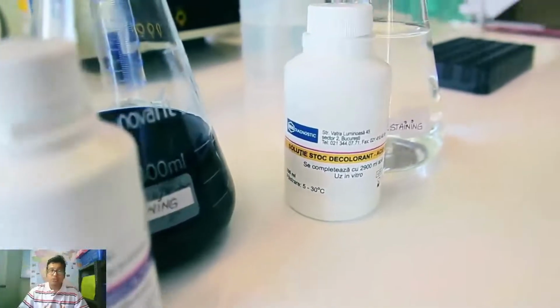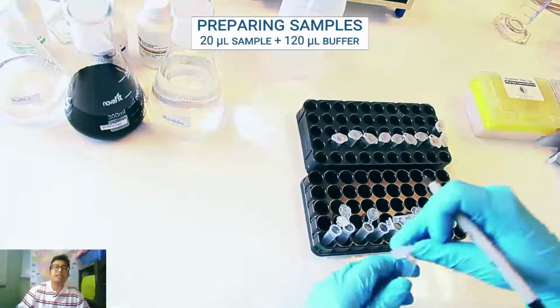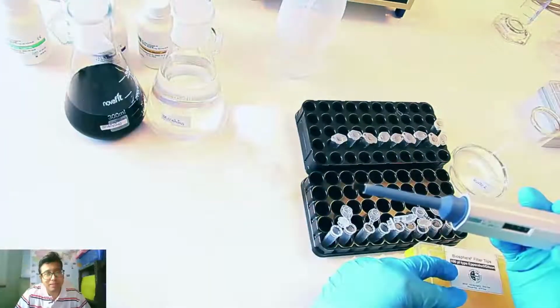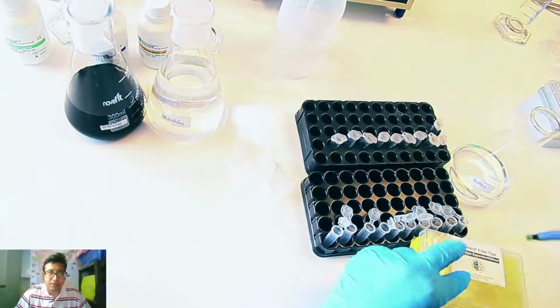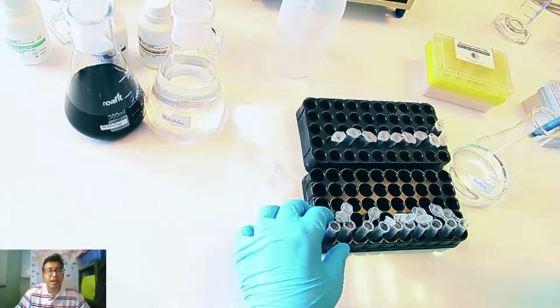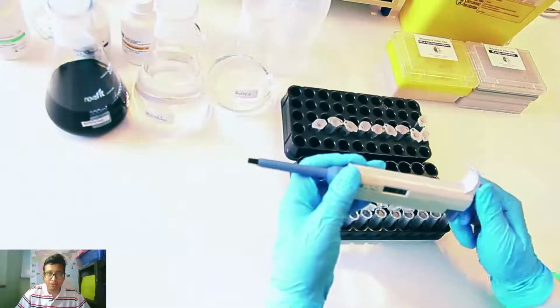So as I told you, they will be doing it in an automated instrument. So see, these are serum protein samples, meaning samples from real patients. So first, how are the samples prepared? We mix a certain amount of serum sample, okay. First the serum is isolated from blood, and then it is mixed with some amount of dye. The exact amount that is to be mixed is definitely written in the lab protocol.